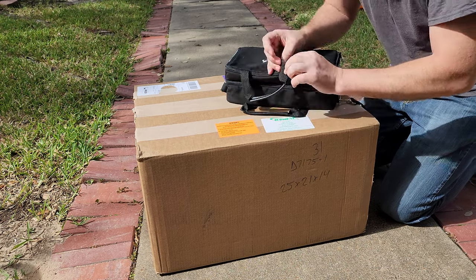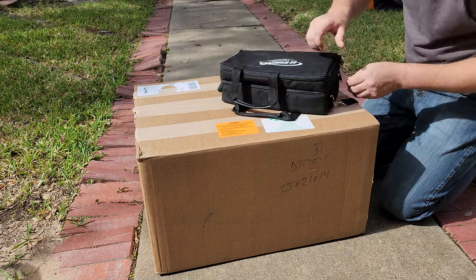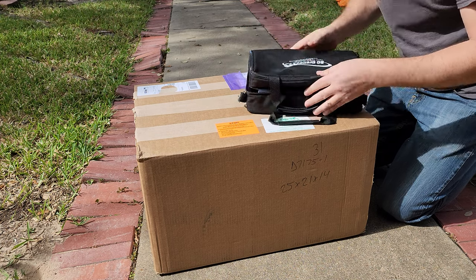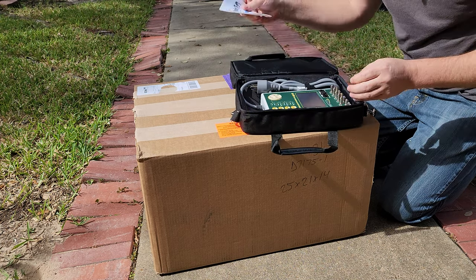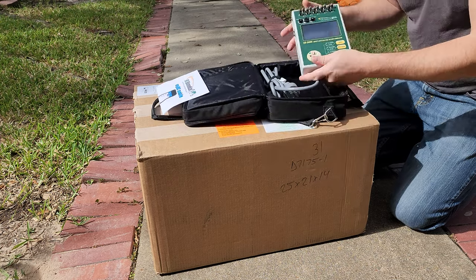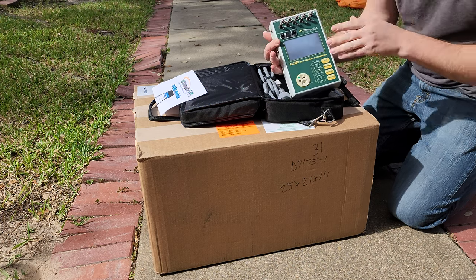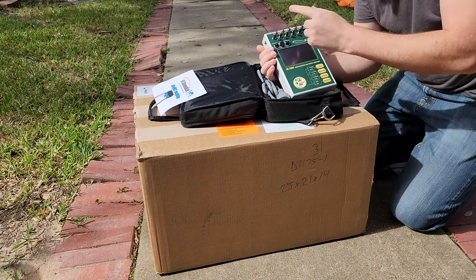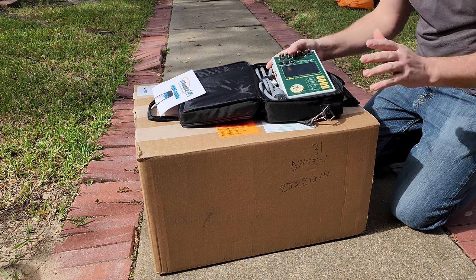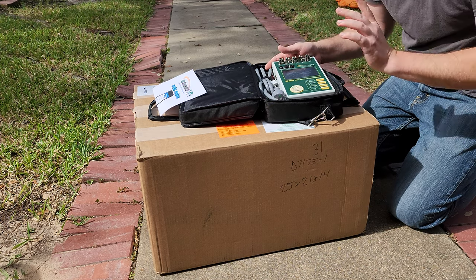There are two different areas — I've got a probe, and here we go for the second piece: I've got the new SA 2600 electrical safety analyzer. This is the touchscreen version that I saw at the shows. They said they had a surprise for me and they were gonna send it out — this is for demo purposes.